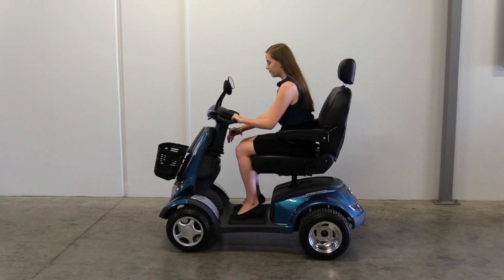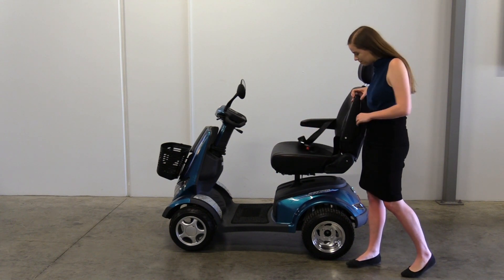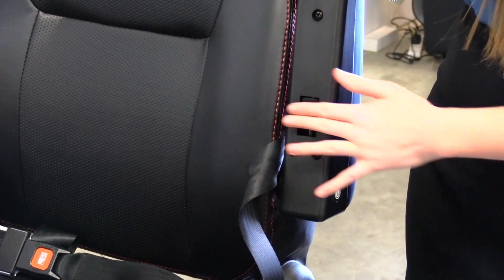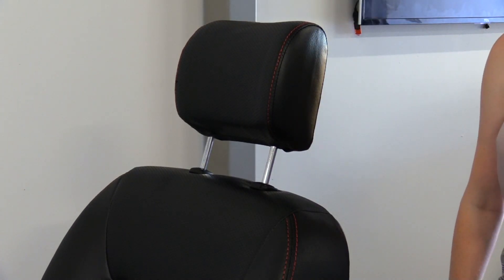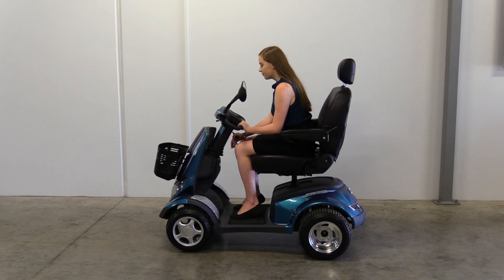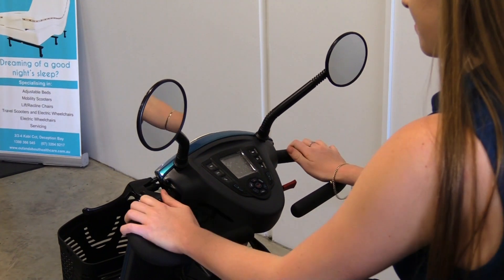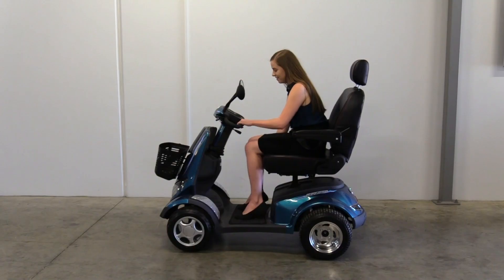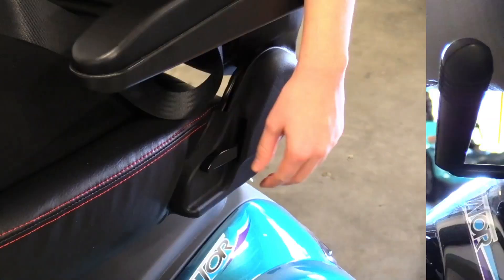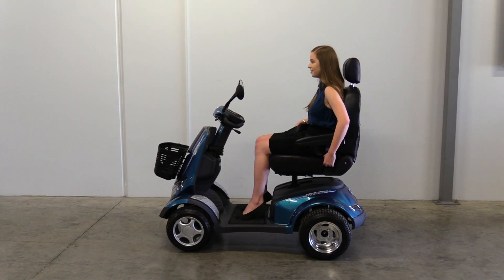The Aviator offers a number of comfort adjustments to suit individual needs. The angle of your armrest can be adjusted by turning the adjustment dial. To adjust the height of your headrest, press the button at the bottom and position it to a comfortable height. If you need to bring the tiller closer, push the lever on the tiller down and pull the tiller towards you, releasing at your desired position. To bring your seat forward or move it back, bring the front lever underneath your seat up and position it comfortably before releasing the lever. To adjust your seating angle, pull the seat lever up and push back against the chair to recline, or lean forward to bring it closer.